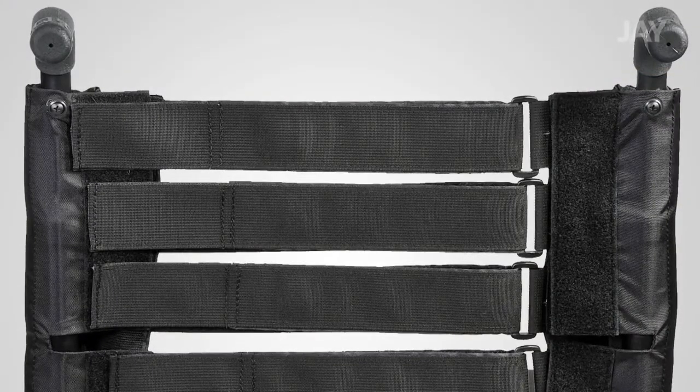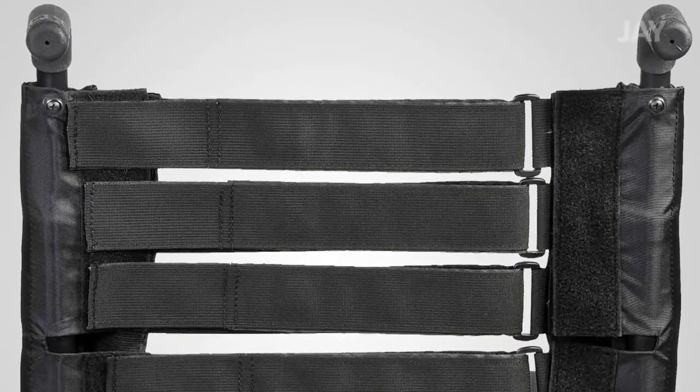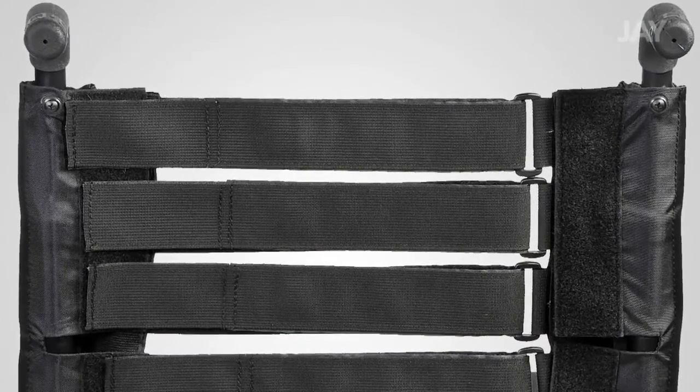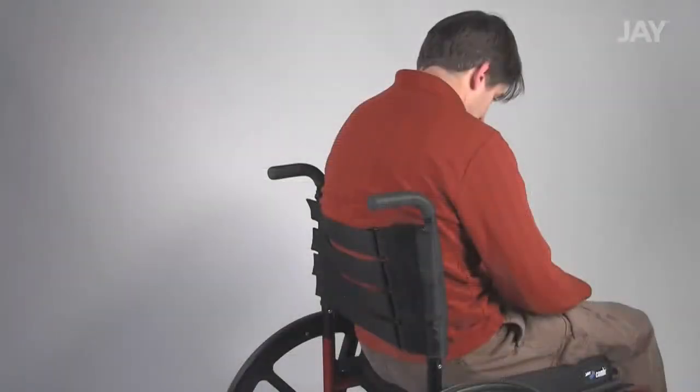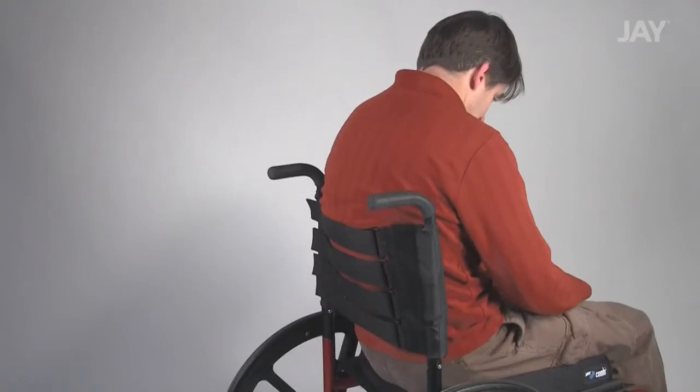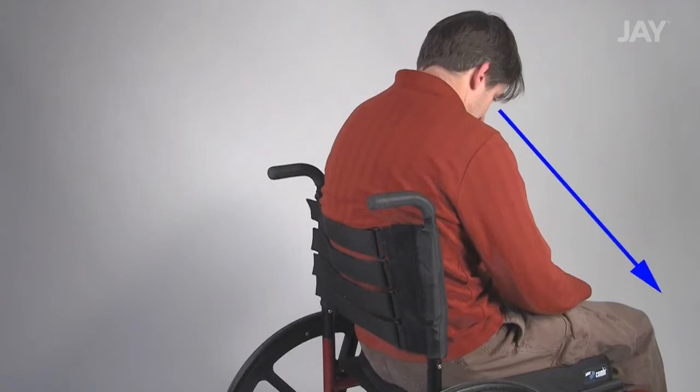To help understand the Jay Go Back Tension Adjustable Strap System, let's look at an example of a user sitting in a chair without the backrest foam and cover. In this example, the curvature of this user's back is forcing him to stare at the floor.